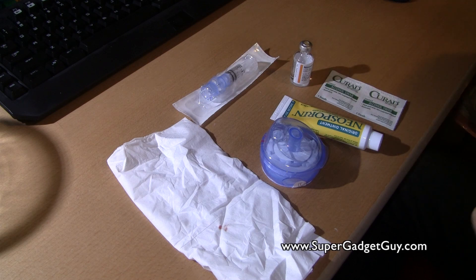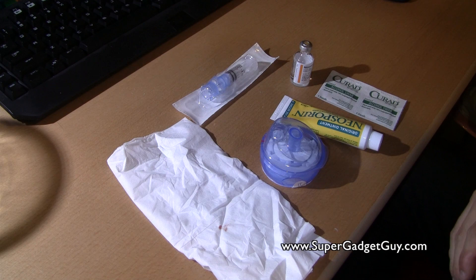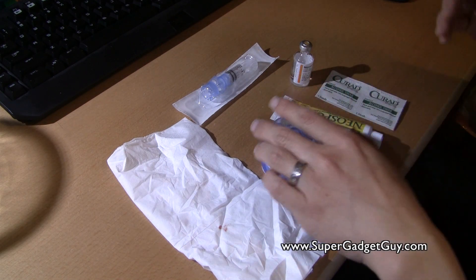You basically do a minor bleed for like three days, and then you pull out — but I survived, I lived, I learned. It's okay.